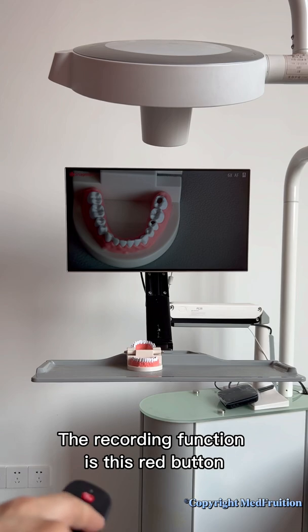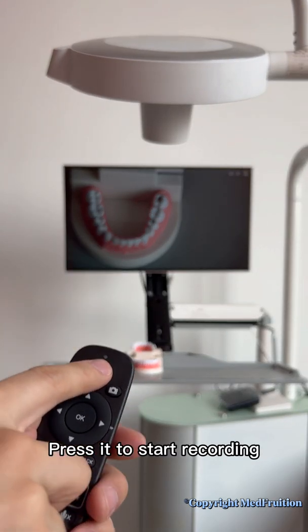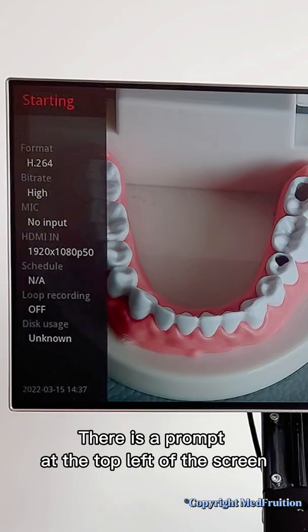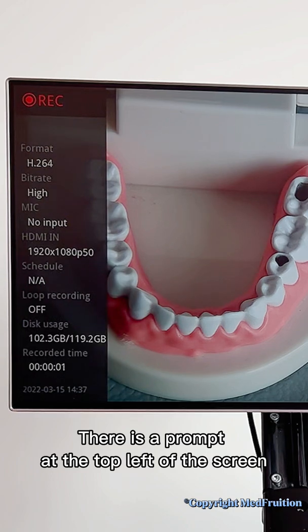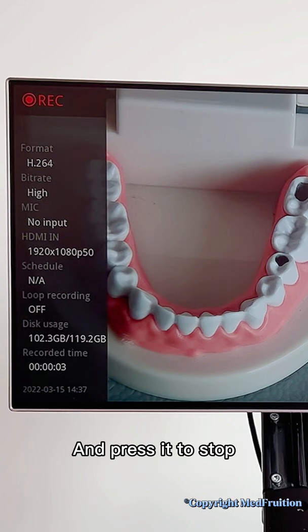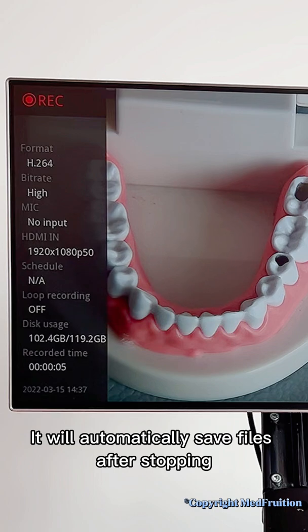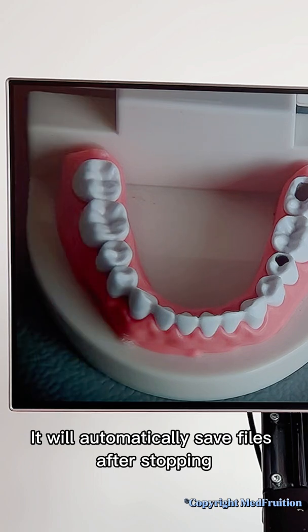The recording function is this red button. Press it to start recording. There is a prompt at the top left of the screen. Press it again to stop, and it will automatically save files after stopping.